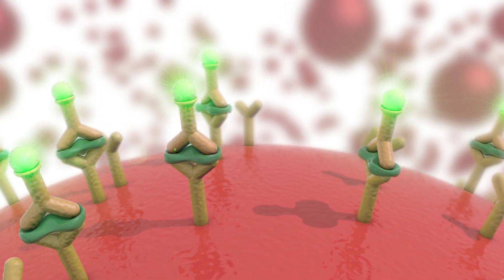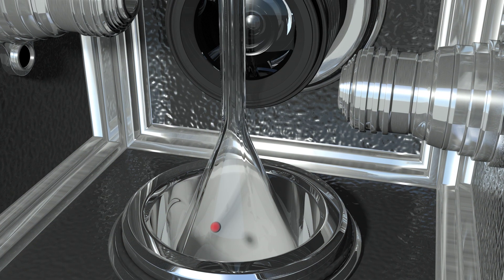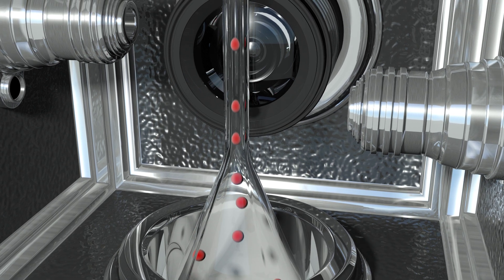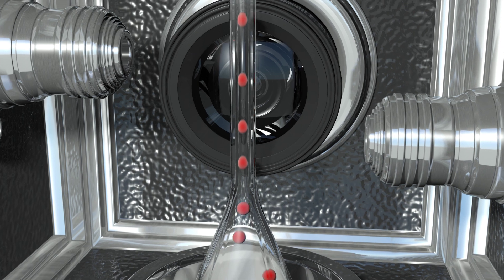A sample probe draws the suspended bead with the captured and labeled analyte into the instrument. The beads are carried by the system sheath fluid into a cuvette where the randomly distributed beads line up in a single file. This allows the particles to be measured discreetly.